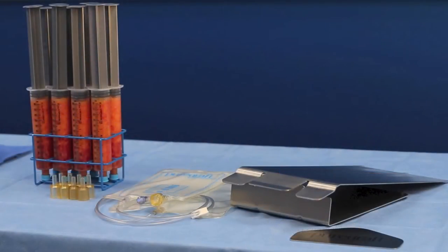Tissue may be harvested in Toomey syringes or collected in a sterile container and then transferred to the Toomey syringes.